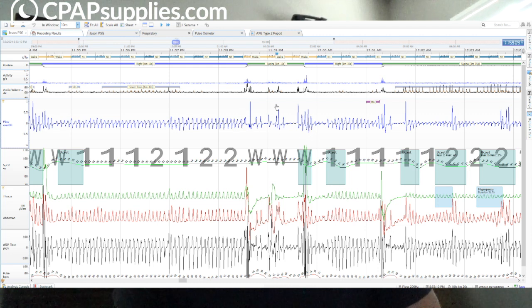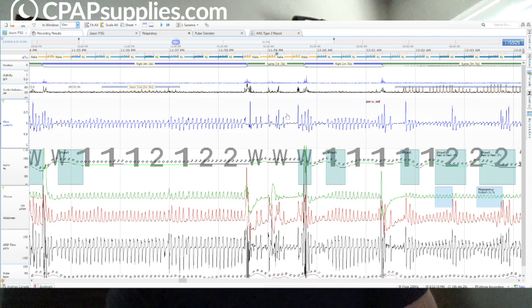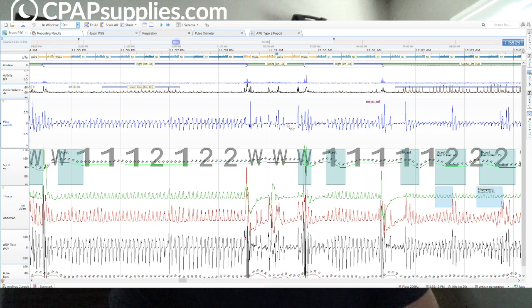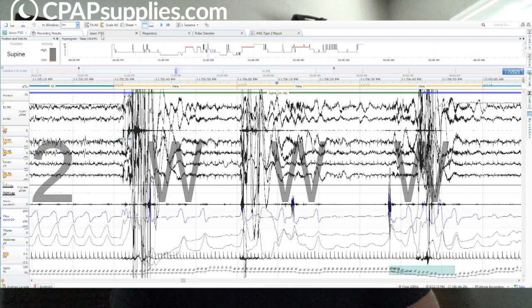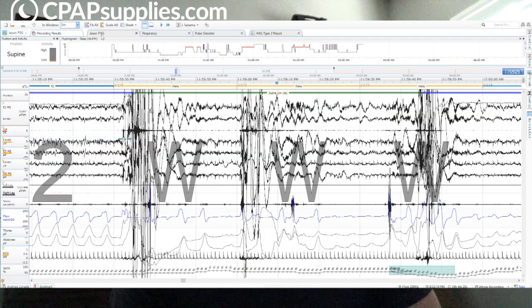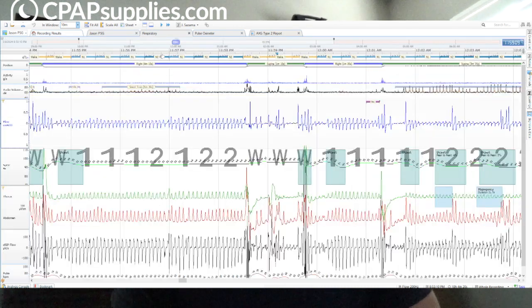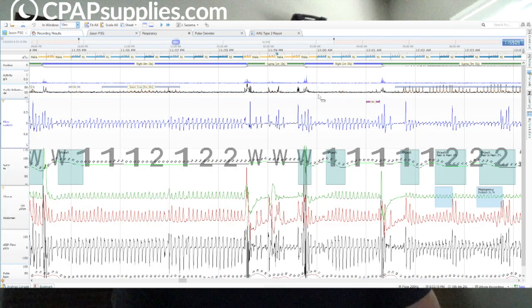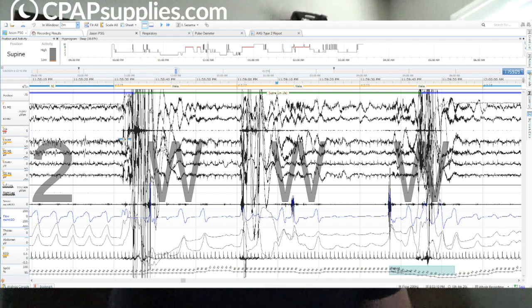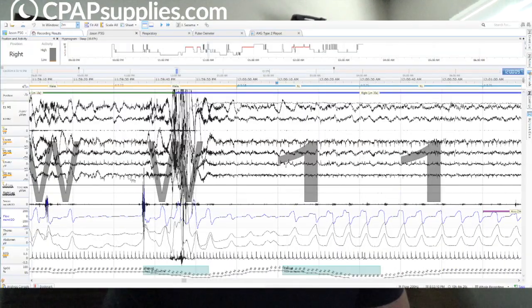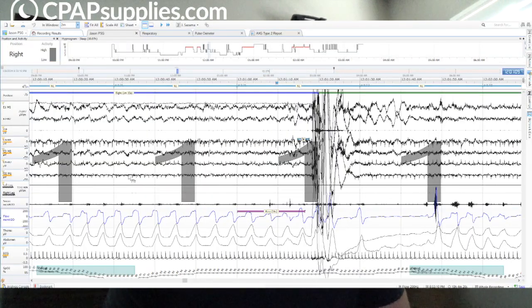But if we zoom out and we're looking at it from like a perspective of Oscar, we're looking at this little section right here. It looks terrible. And your machines, your CPAP devices or bilevel are flagging these as like obstructive apneas, central apneas, obstructive hypopneas. But it's really just this sleep-wake junk. So largely, pretty much just if you see an awakening, something that looks odd, just really kind of ignore everything after that. You're going to be a lot better off not panicking. So by the way, a lot of nuance to that. If you'd like, hit me up, axgsleepdiagnostics.com. I'll go over this stuff with you on your personal data.